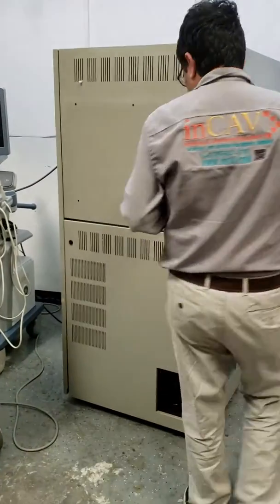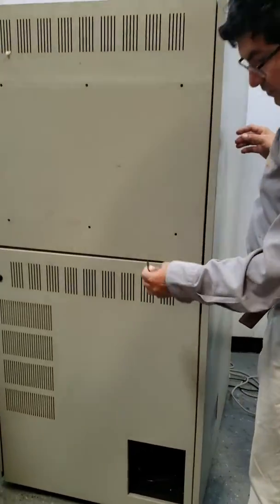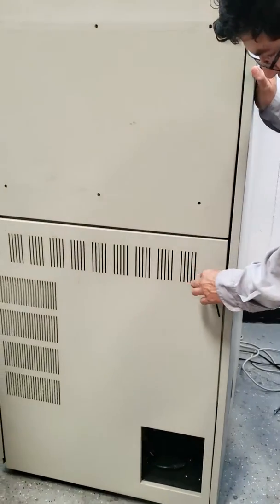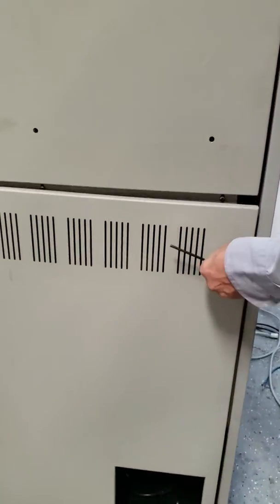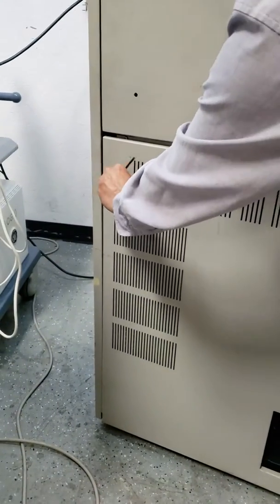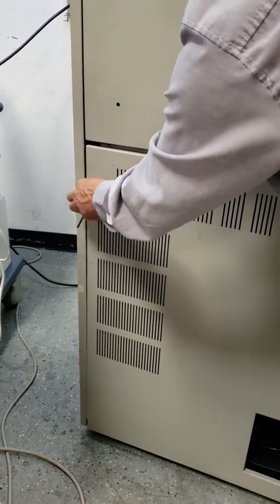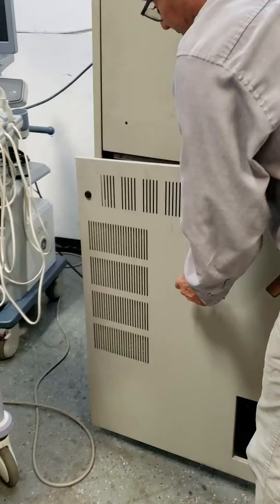Okay, then you need to first open the back. You need this allen key to open. You can remove the back door.